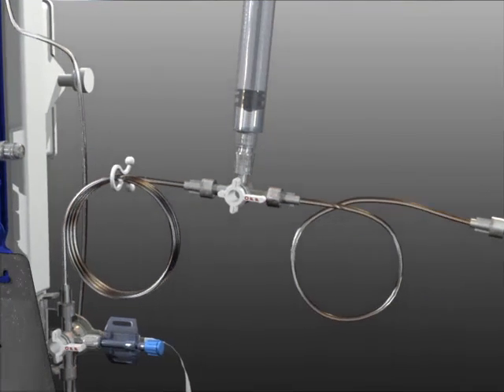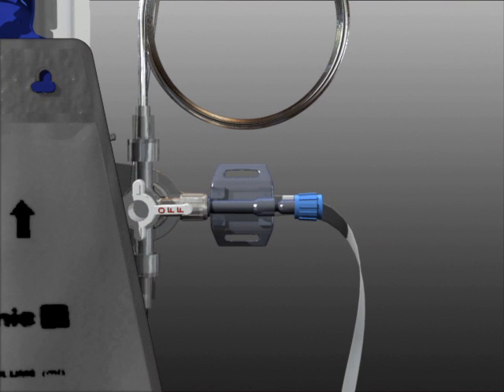If using a pressure transducer, prime it at this time. Using sterile technique, loosen the end cap on the transducer so fluid can flow through it.